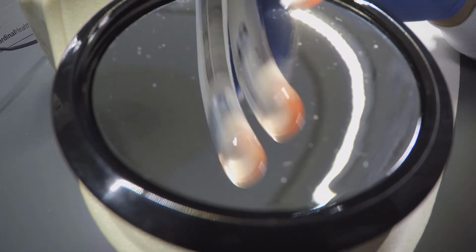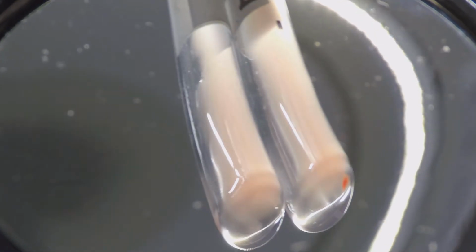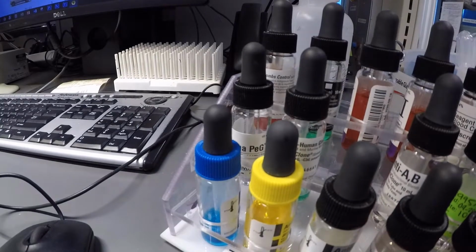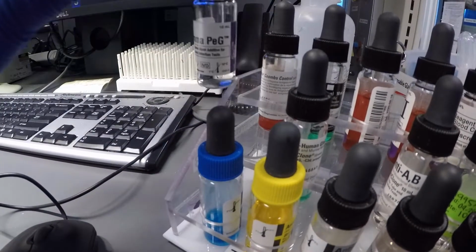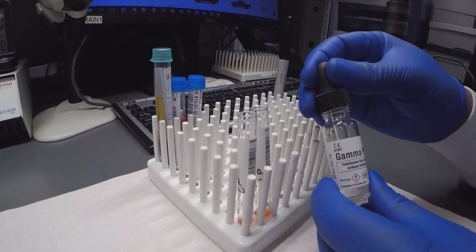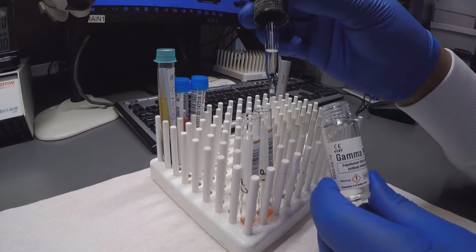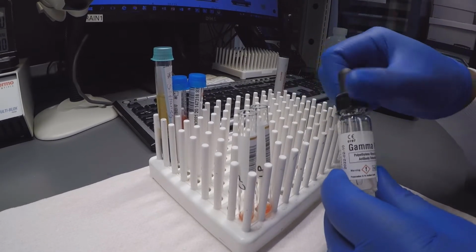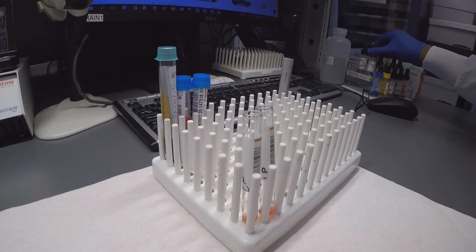For patients with a history of antibody, it is critical to perform what is colloquially referred to as a full crossmatch, which requires a 37 degrees Celsius incubation. Polyethylene glycol, abbreviated PEG, is a commonly used reagent to speed up the incubation time of the crossmatch. Additionally, PEG can enhance a weak or difficult to visualize serological reaction.